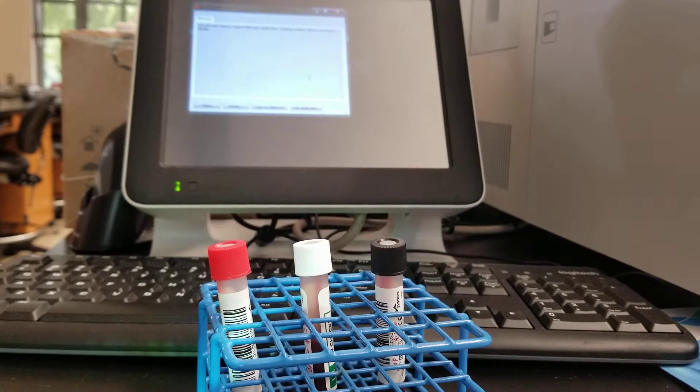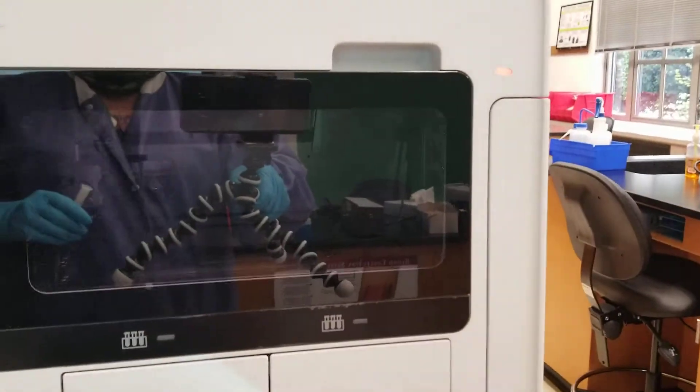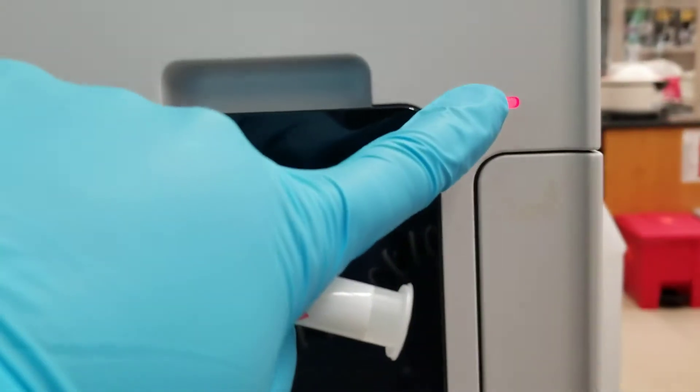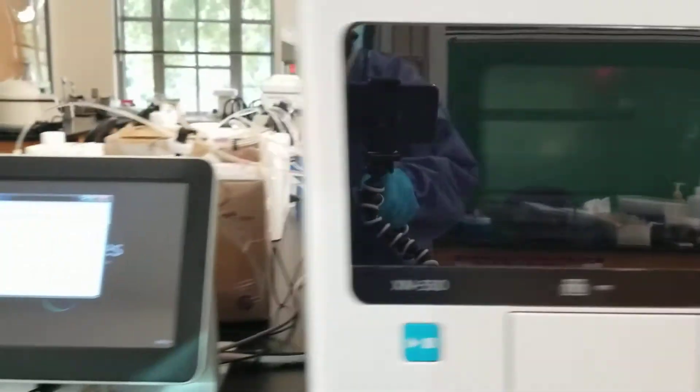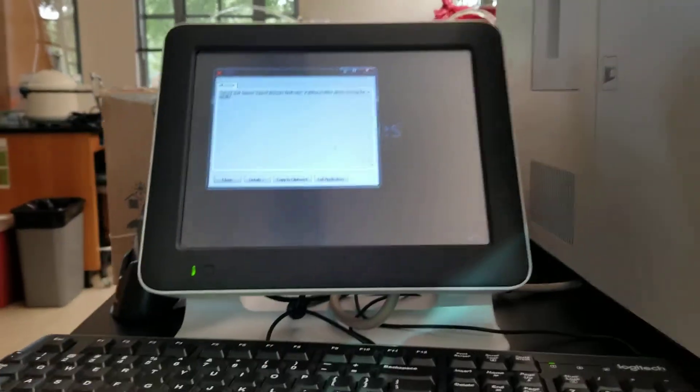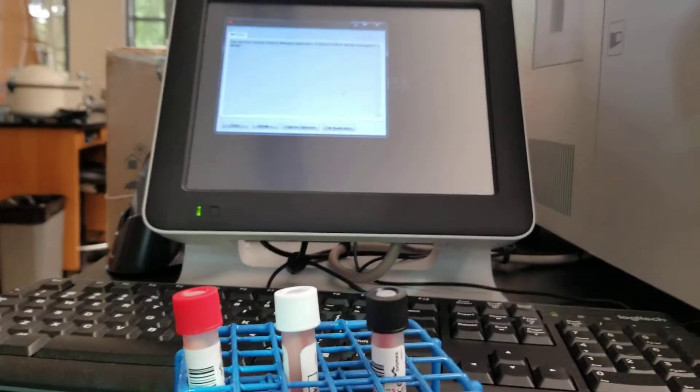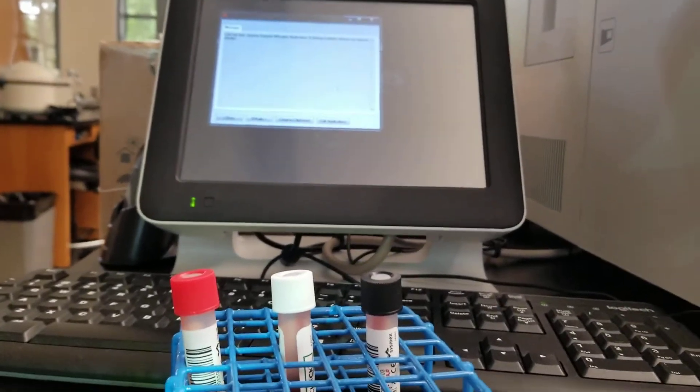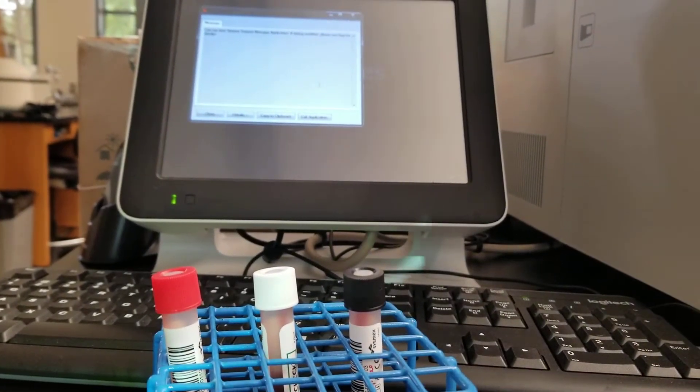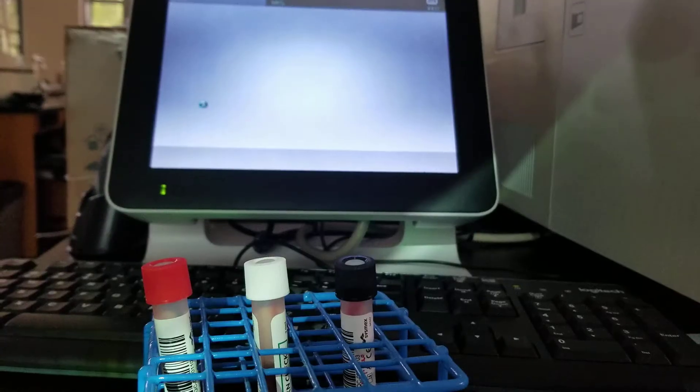If I open it now, it's going to scream at me. Here the red light says we're not ready yet. So we're going to keep on waiting for this to get ready. I'll come back.